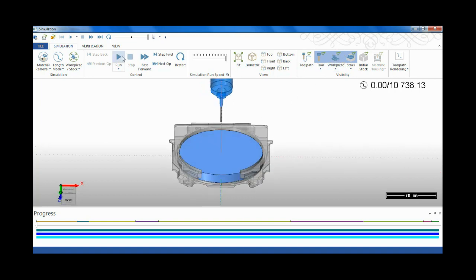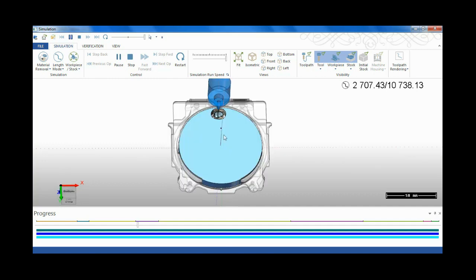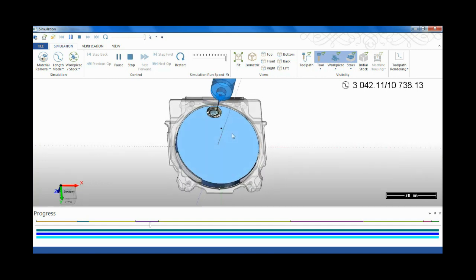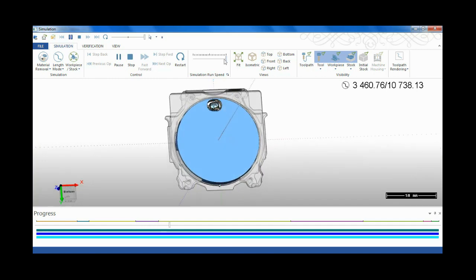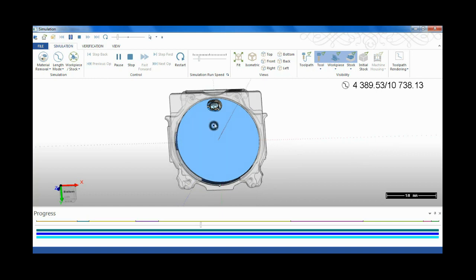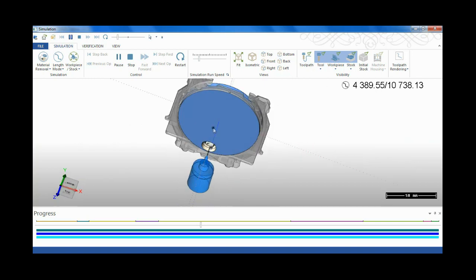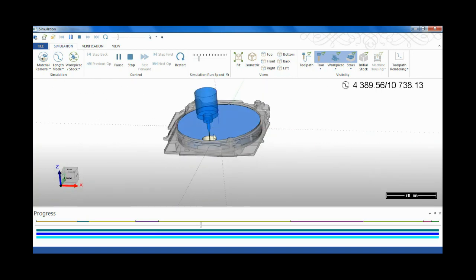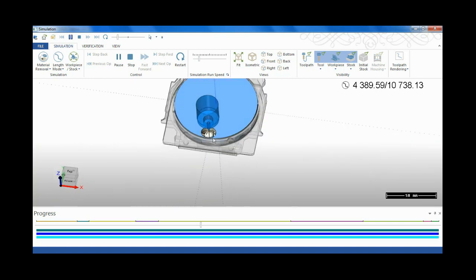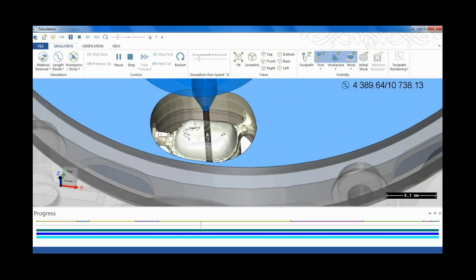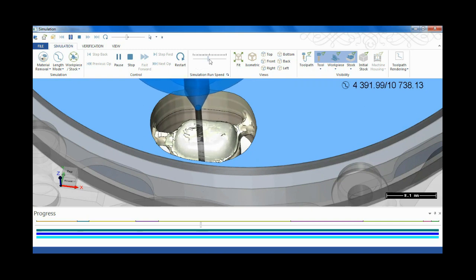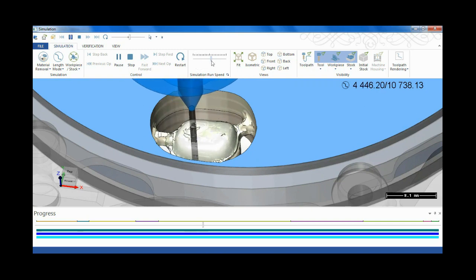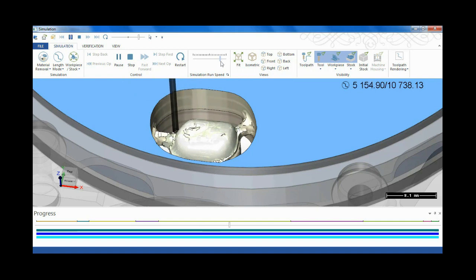Click on run button and adjust the simulation speed, as I do here. And you can check what the result will be in this window.